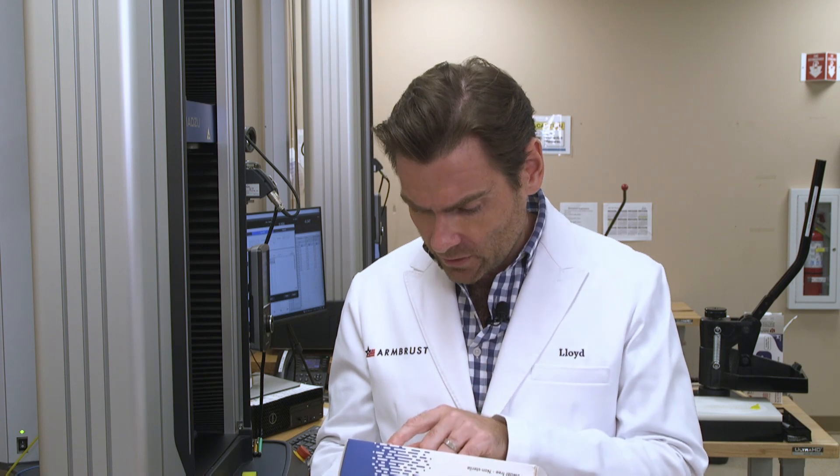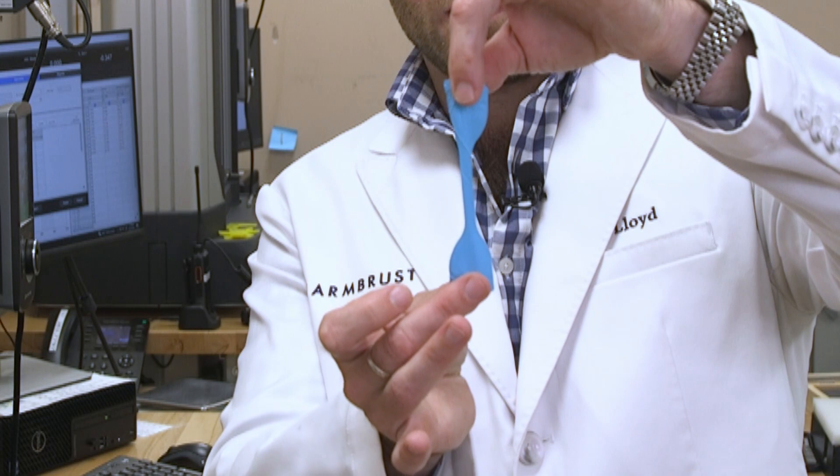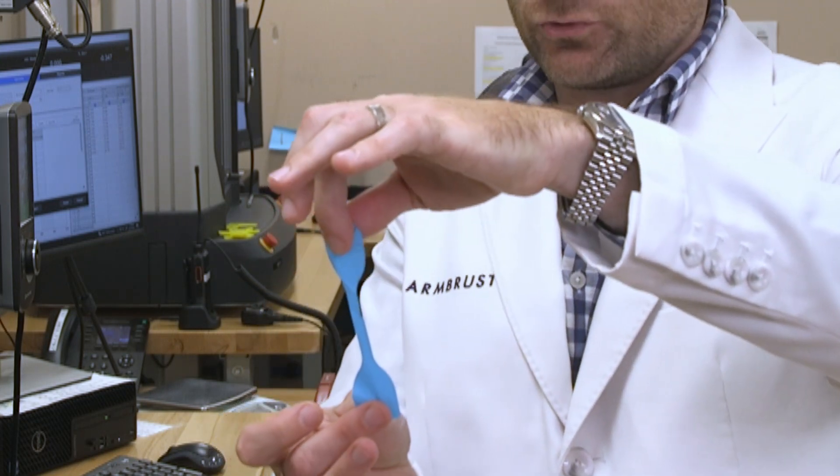The date of manufacture is December 15, 2021, which is very confusing. In technical terms, that's an old glove. So it's going to have slightly different manufacturer standards, which I'll show you in a second.